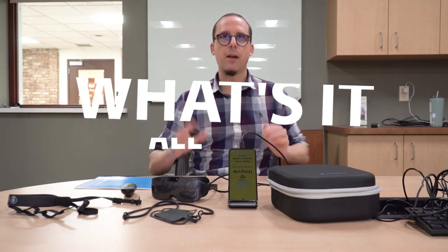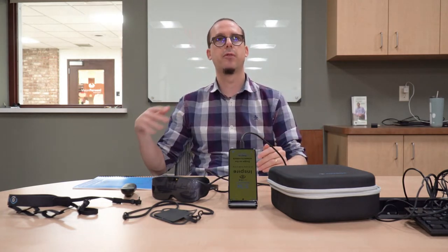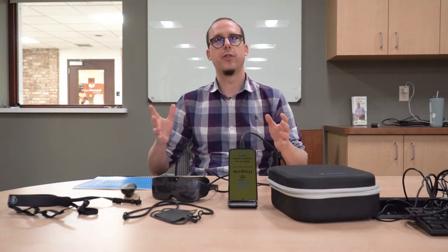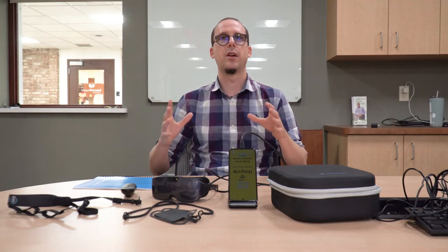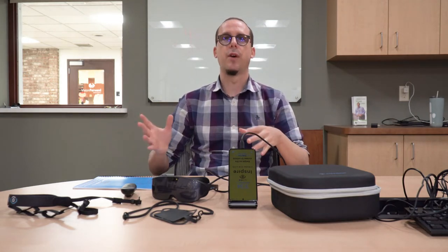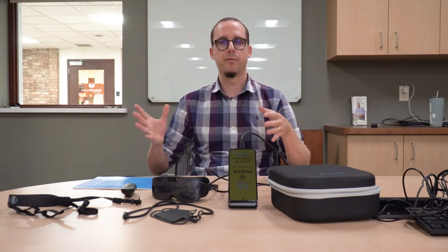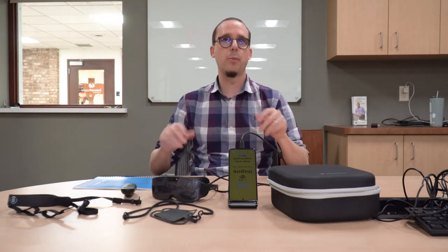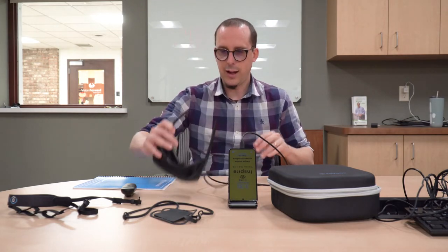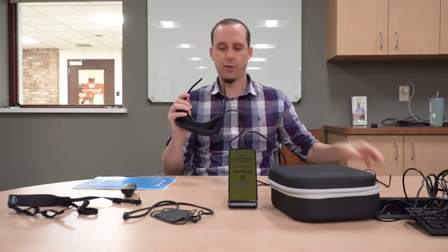But what is the Inspire all about? Basically, IrisVision have taken the software from their IrisVision Live device and put it inside this new headset. This headset has been designed from the ground up by IrisVision, whereas their IrisVision Live device uses a virtual reality headset and phone from Samsung. So this one is a bit more special because it has a bespoke design, and it is a lot more like a pair of regular sunglasses than the IrisVision Live.